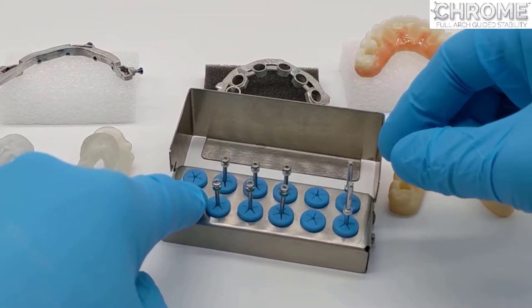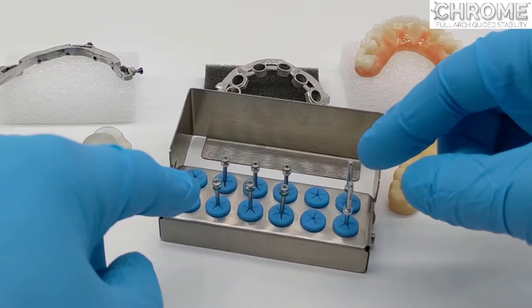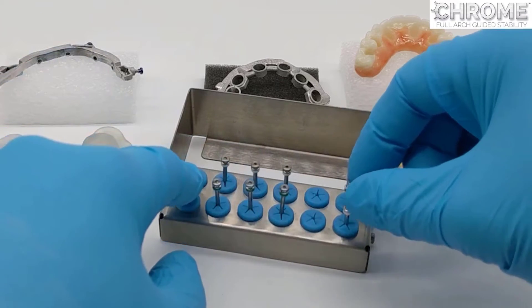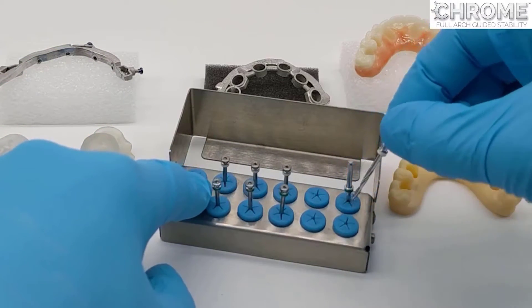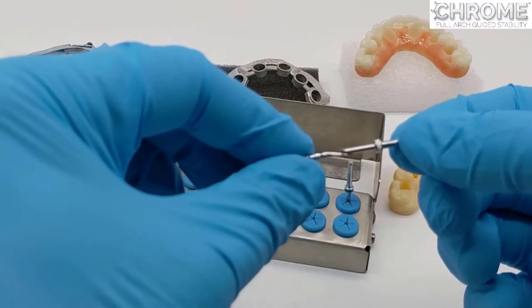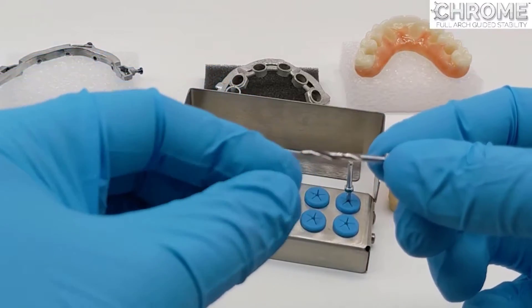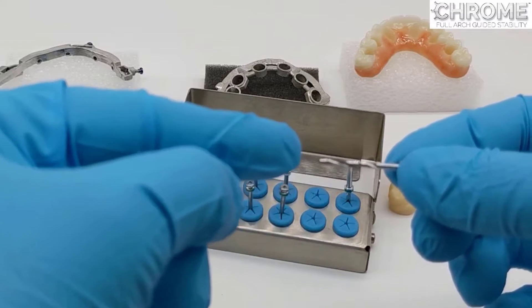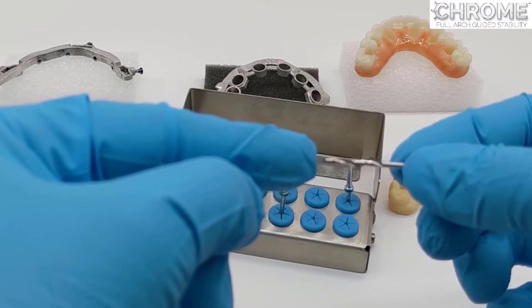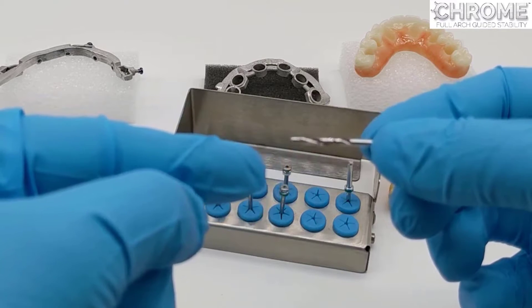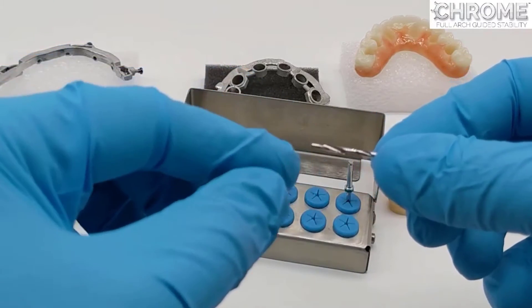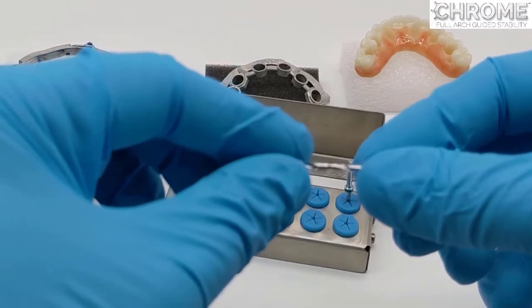Over the years we developed a special fixation kit. This is used to connect the fixation base to the bone. The reason it's unique is because it's a step down system, which is advantageous especially in the maxilla. The drills and the pins are coordinated for length, and the idea is that the drill goes and enters the cortical plate but it does it in a step down position.